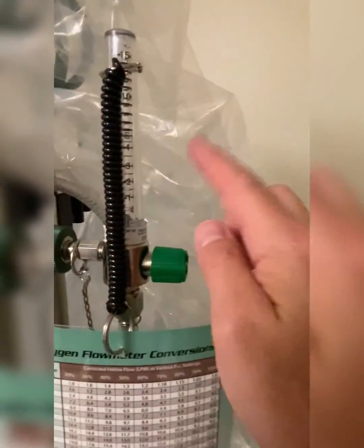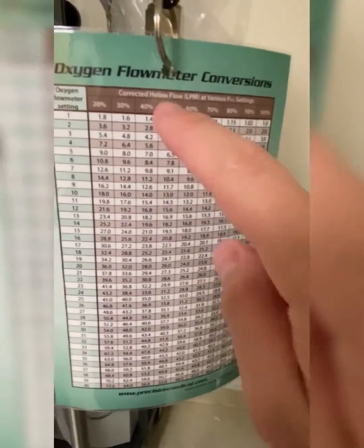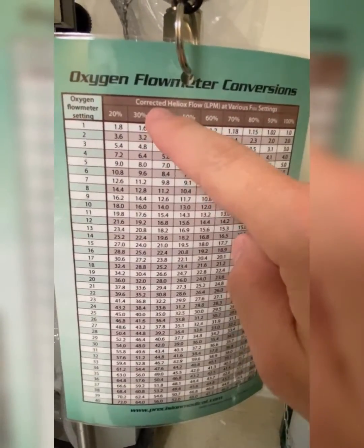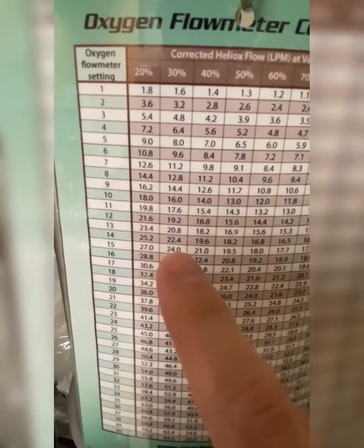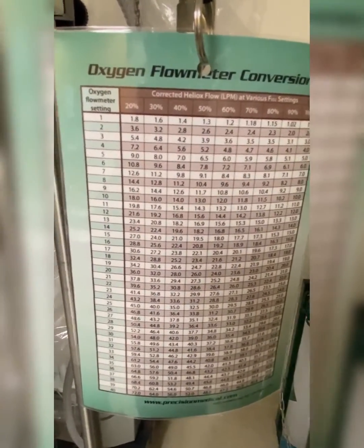Usually we're going to run it at about 15 liters a minute. So I'm going to find my 30% FiO2 column — that's what my patient is on. I run my finger down the flow of 15 on the flow meter and I get 24 liters a minute of total flow.